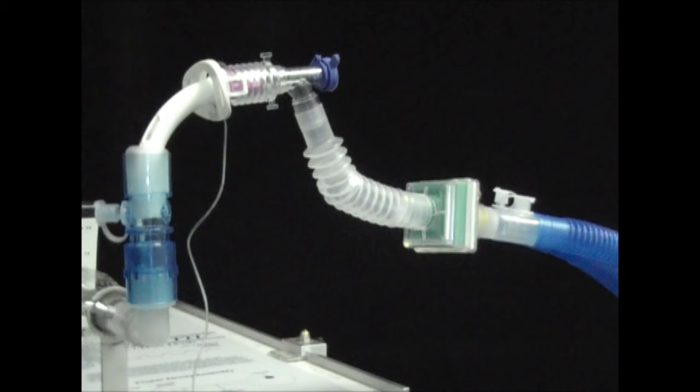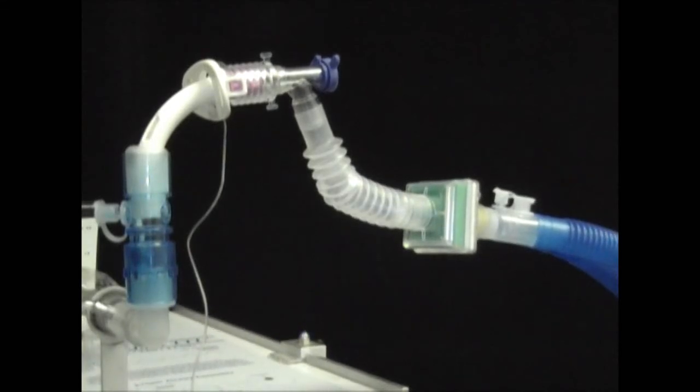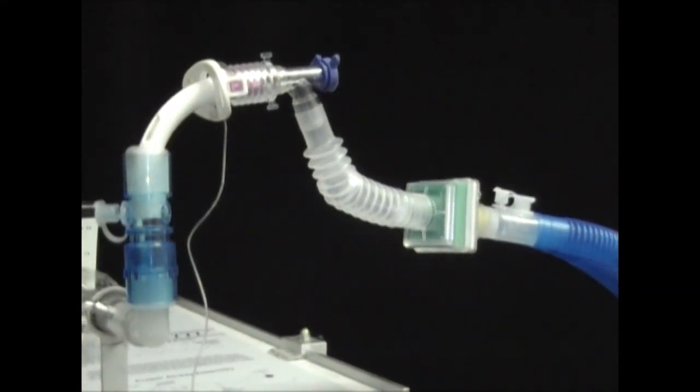Remember, when using the speech cannula, either active or passive humidification can be used. When using passive humidification like an HME, be aware that no heat or moisture is going to be exchanged while the speech cannula is in use. This is because all of the air is being redirected out of the upper airway rather than back through the HME.